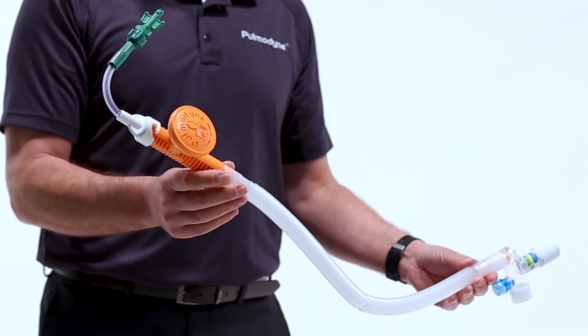This is also a good time to highlight the fact that the O2 Max is made in America. Because the O2 Max is made in America, we are subject to FDA quality regulations. That means that each O2 Max is tested here. This is also a great reason why we do not need a manometer to support our product. Each unit is tested and delivers the PEEP, flow, and FiO2 that is documented in our directions for use.